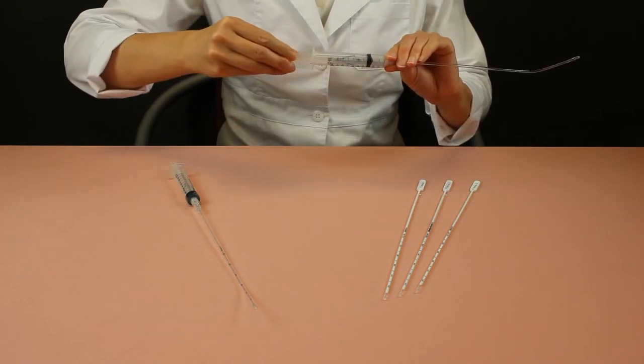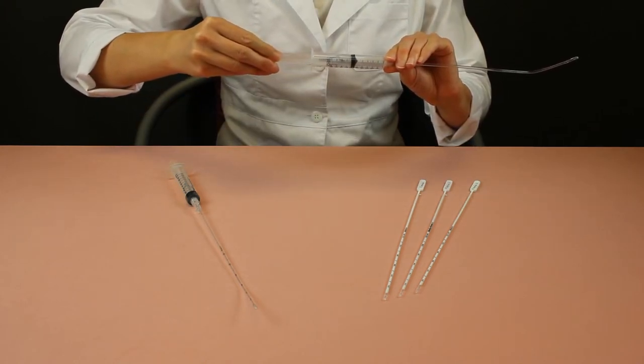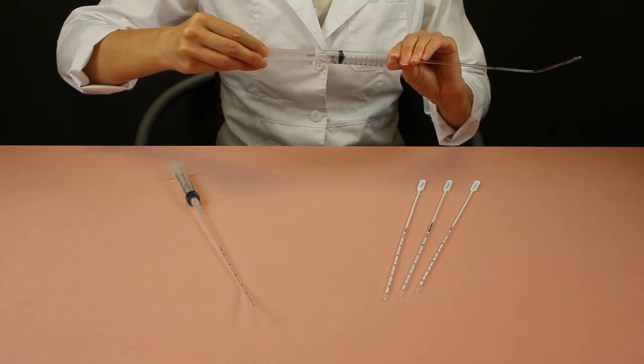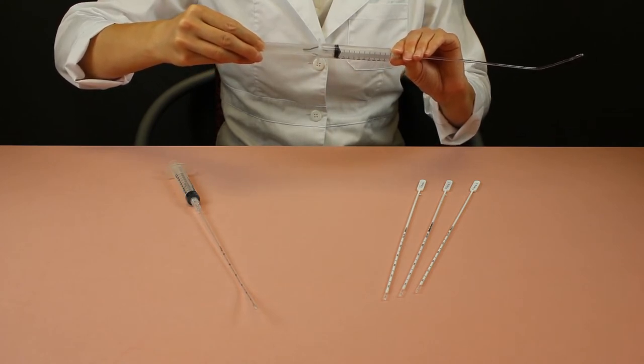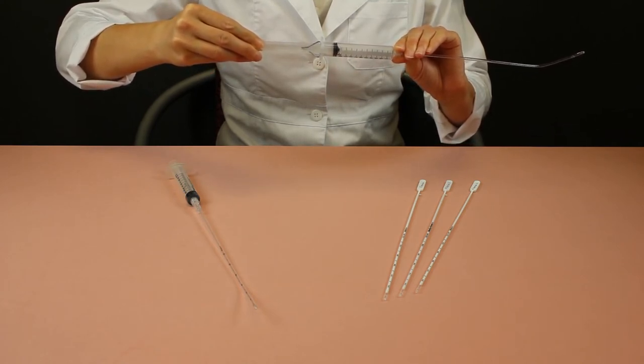There is no backflow of the sample thanks to the lock spring on the syringe, which can be controlled with one hand, making it ideal for ultrasound guided biopsies.